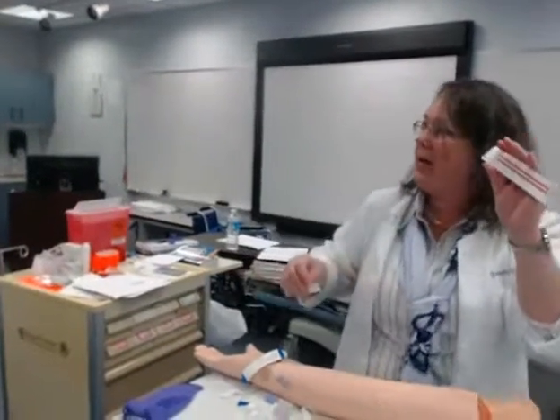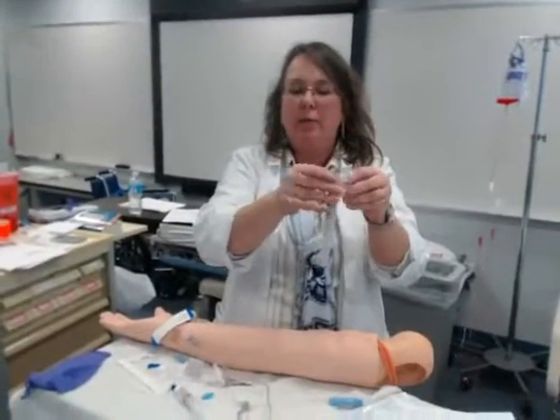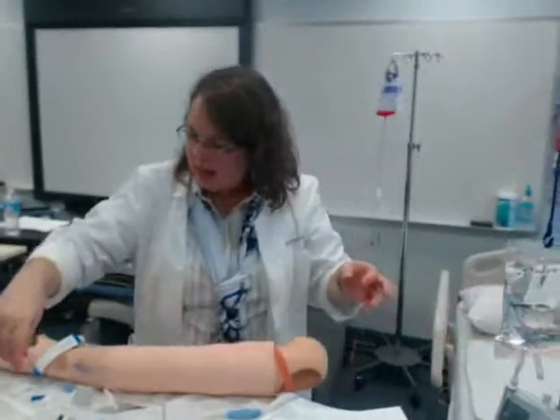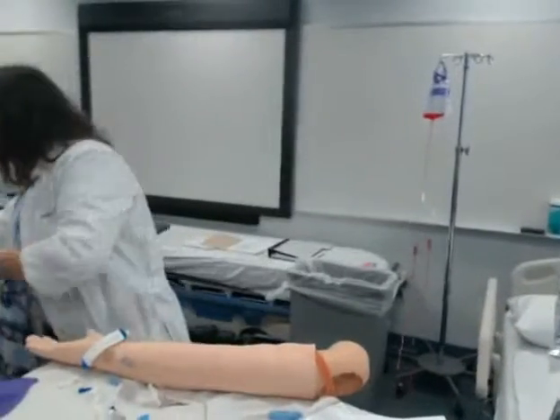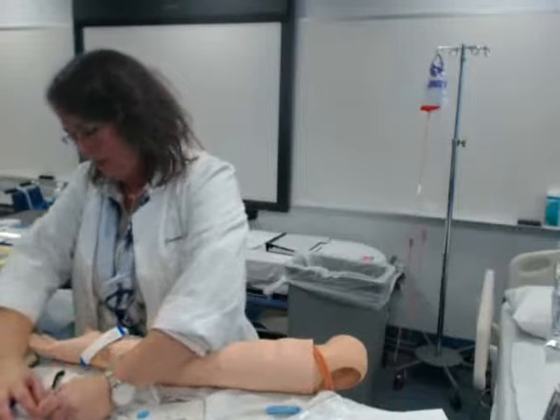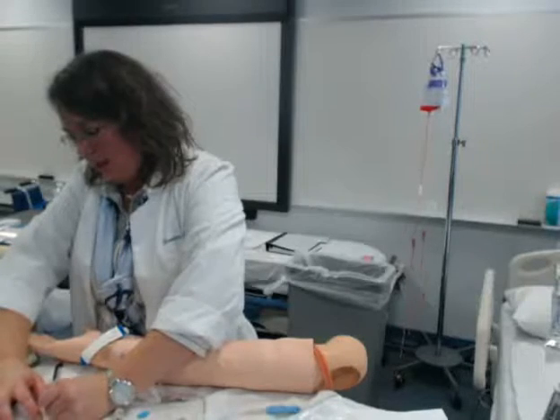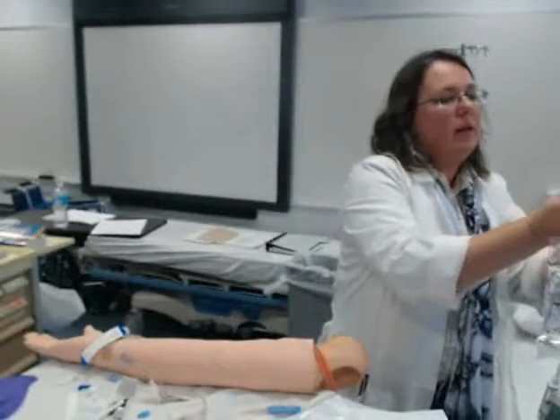DTI is 1040. There are two pieces of tape on the back — you pull off the big one and stick it on your bag. I already DTI'd my label on my secondary. Then I have my two tubing labels, and they are good for a set number of days or hours. So 1, 15, 10, 30, BAW — I pull this off and wrap them around my tubing.